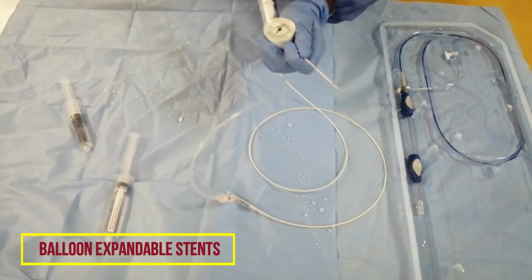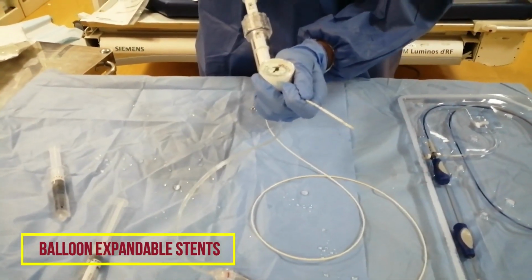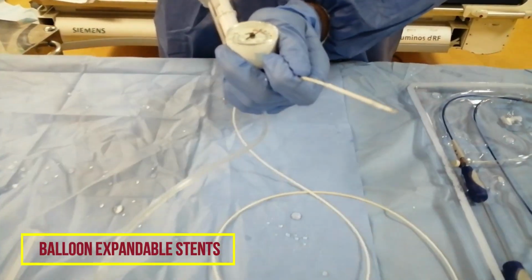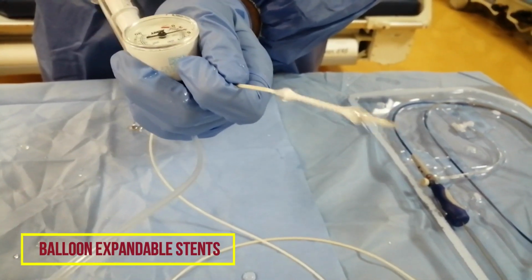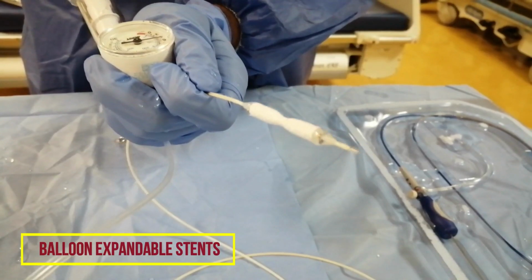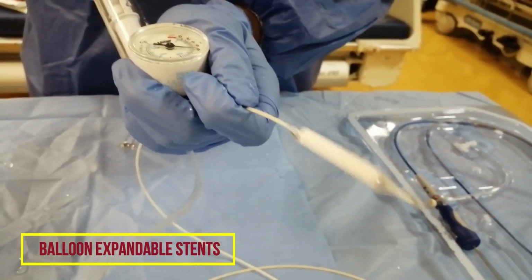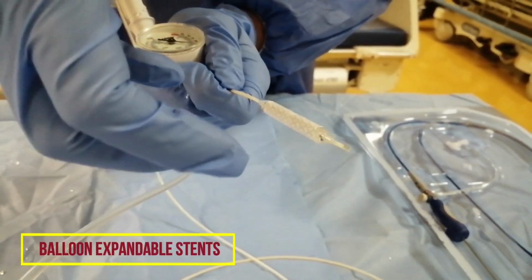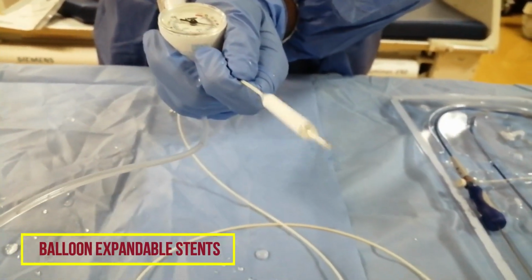I'm going to use the inflation device. You can see how the stent is expanding. You can use the inflation device to deploy. You can see the balloon is inflating and the stent will be deployed. This is a covered stent, called Atrium. Now you can see the balloon is inflated and the stent is expanded. Now the stent will fix in the walls of the blood vessel, or whatever lumen we are using.